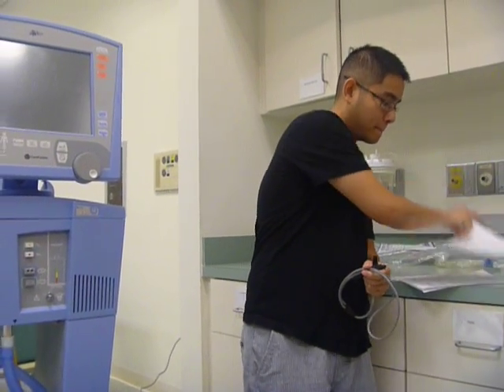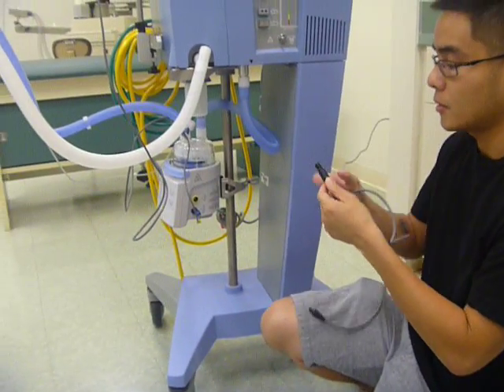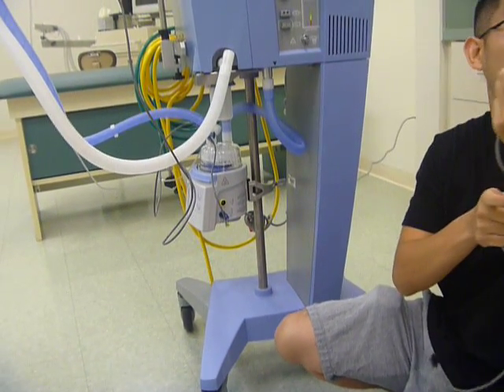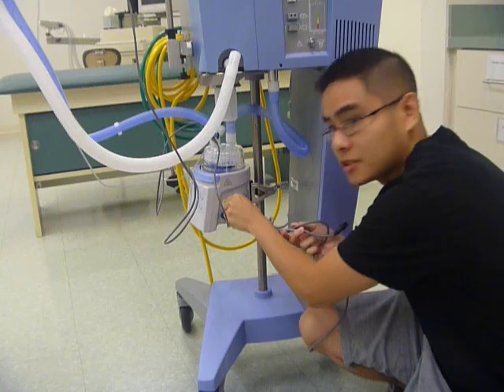Now the top connection. The next connection is the yellow cable. Once again, there are arrows here — you just want to line those up. It shows the arrows but it's not white anymore. So just one push, that's it.